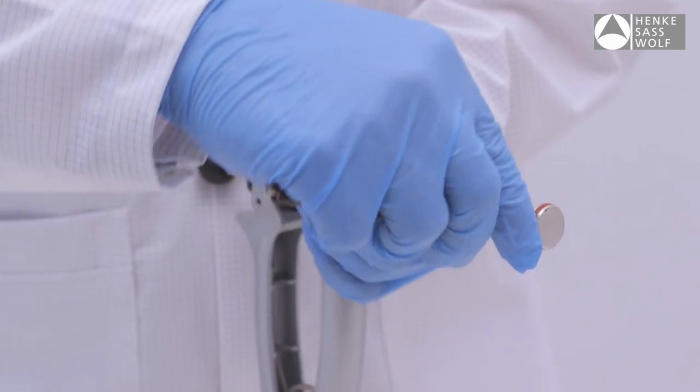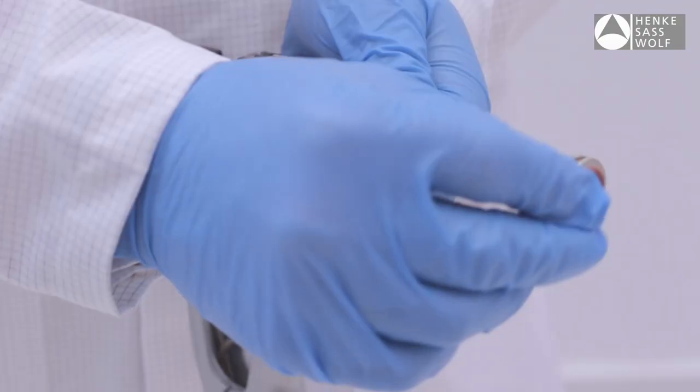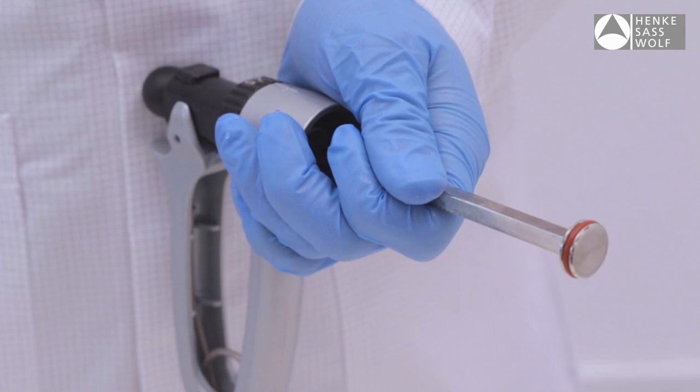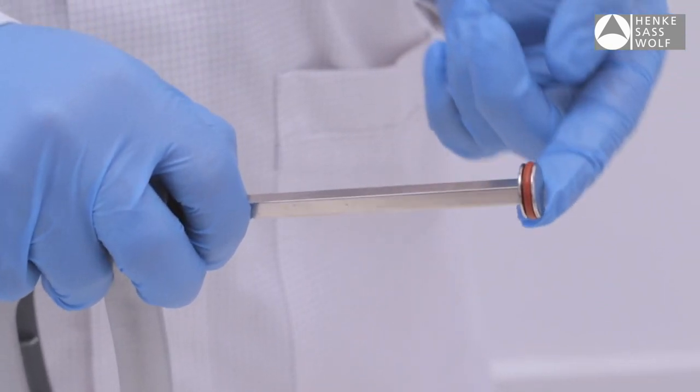Should it be necessary to replace the piston o-ring, remove worn o-ring from the piston, taking care not to damage the groove. Fit the new o-ring to piston and lubricate o-ring.